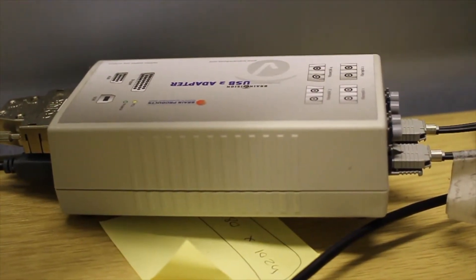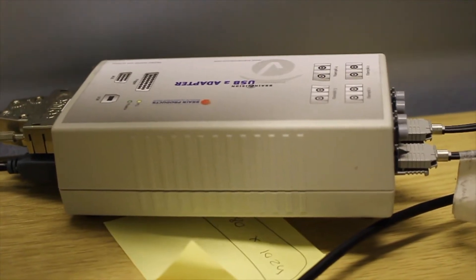This USB adapter transmits the experiment triggers to the EEG. It is important that this cable is inserted fully into the USB port as a loose connection can result in trigger errors such as incorrect numbering.